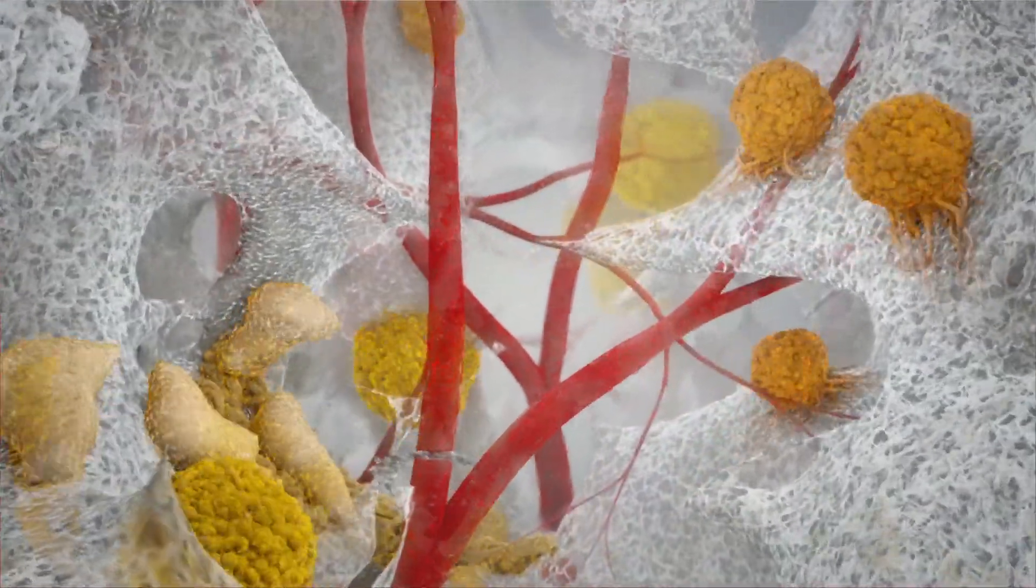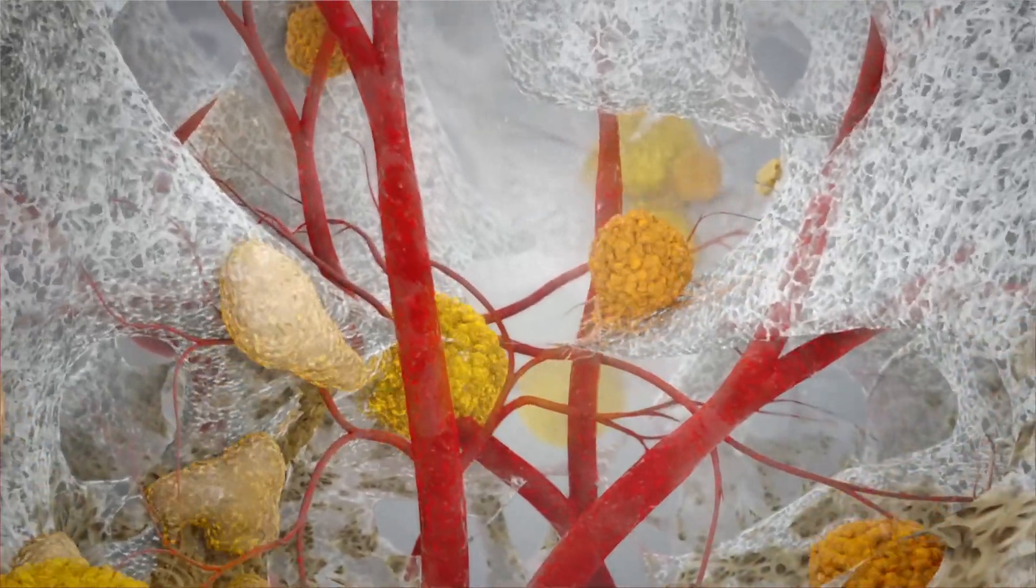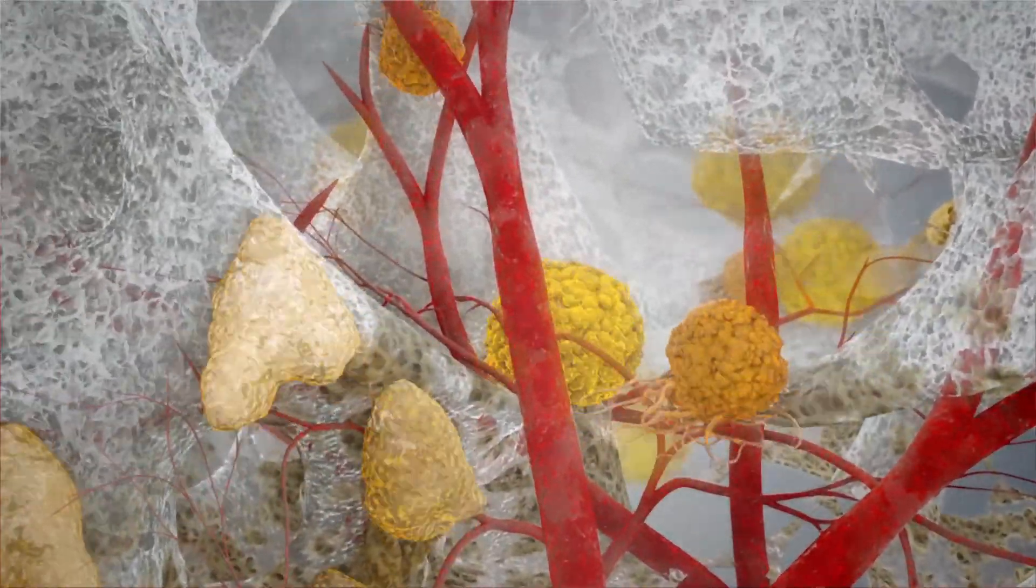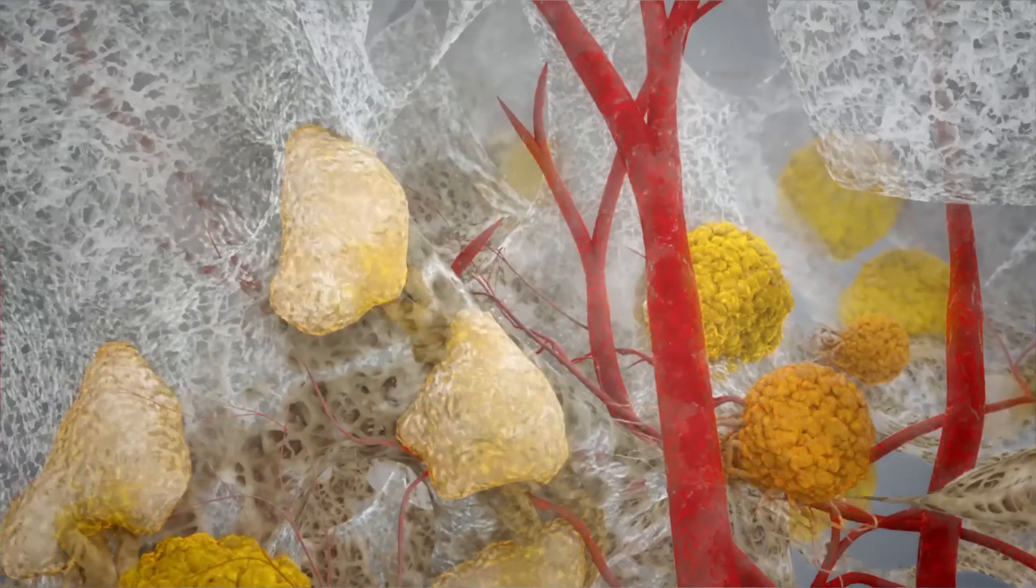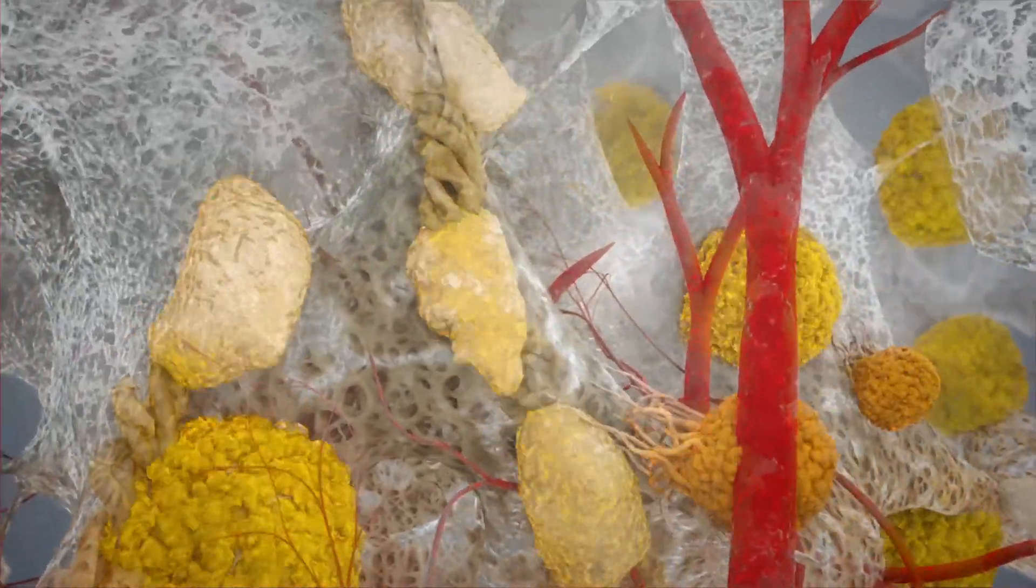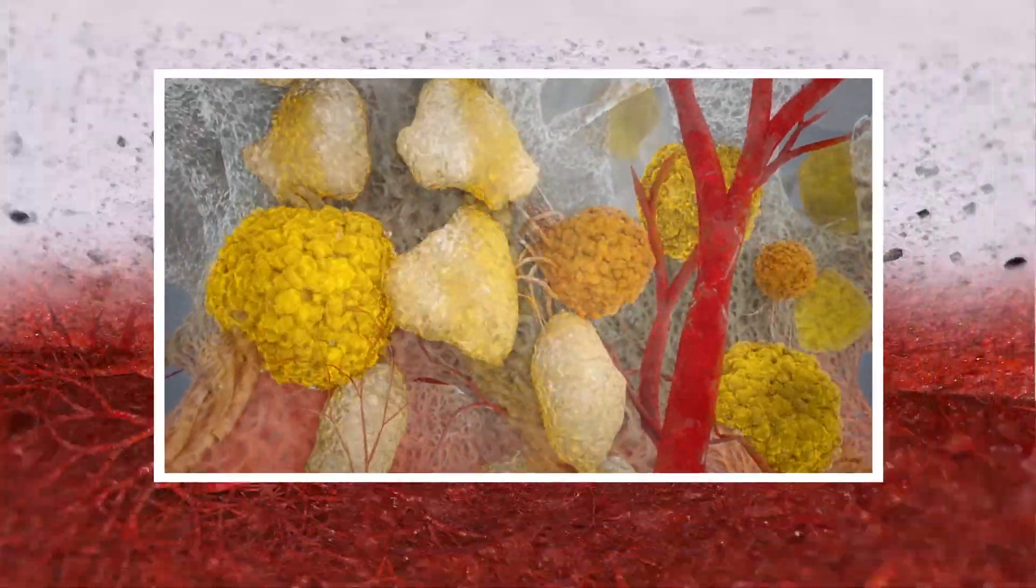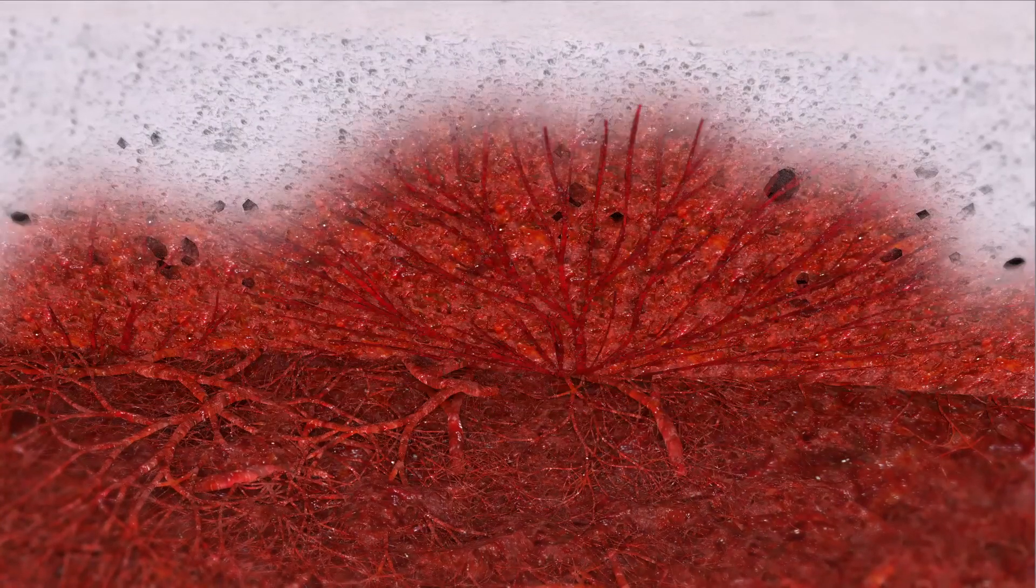In the weeks following application, closer inspection at the cellular level shows the proliferation of new vasculature, as well as macrophages and a fibroblast producing extracellular matrix, forming a connective tissue scaffold that replaces the biodegrading BTM.